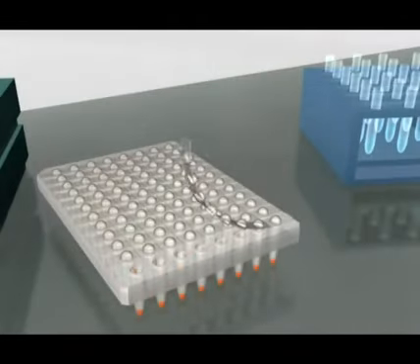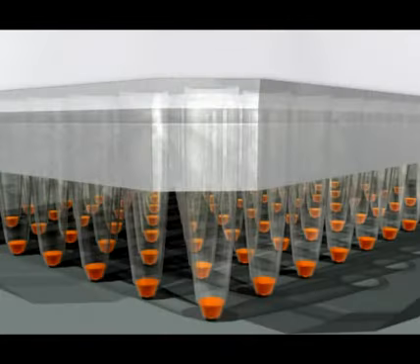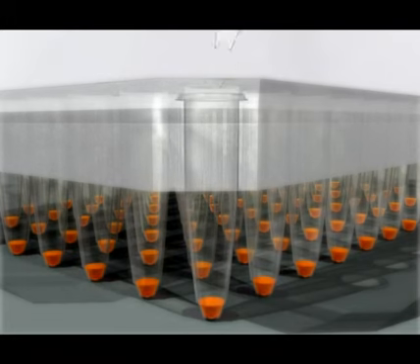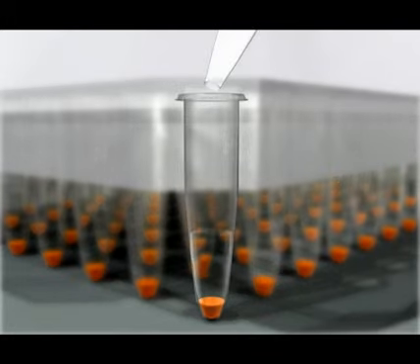Medical personnel simply add the patient sample, which rehydrates a contamination-free gel containing all of the chemicals required for DNA probe testing.